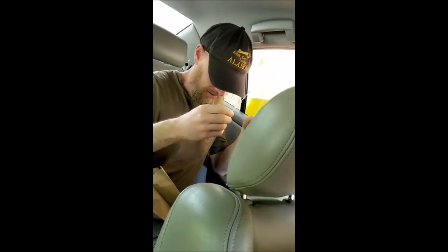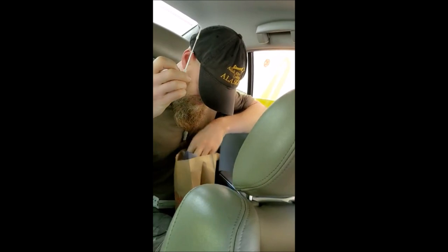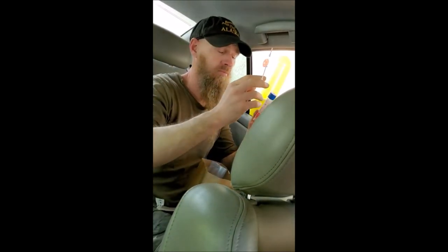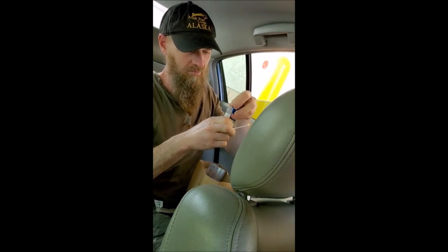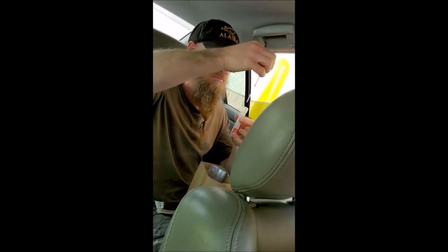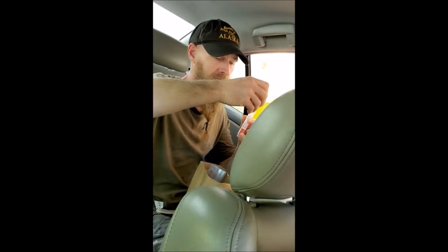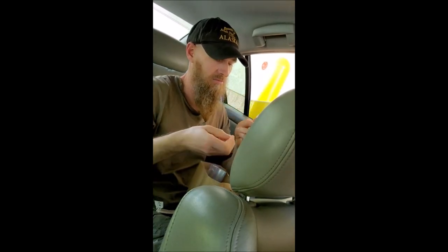Alright, now the vial that you saw in there — you're going to keep that. Just take off the lid there, and you're going to put the swab right there. The swab goes in the liquid part, this side there, just like that. Now the part that you're holding, you just bend it over the side so you can break it off — that's just so you can put the lid back on.